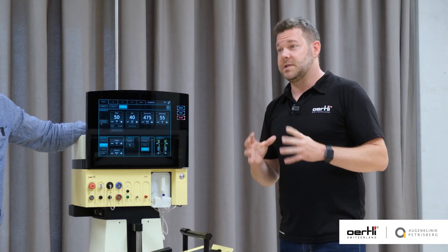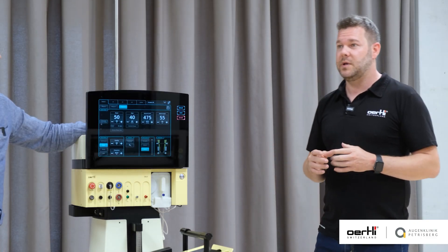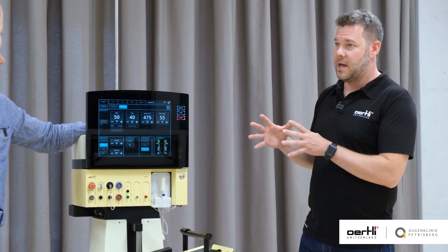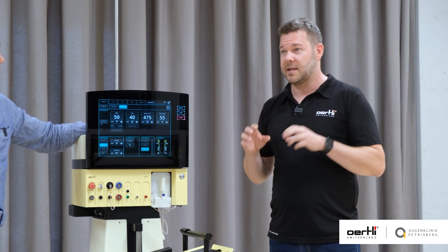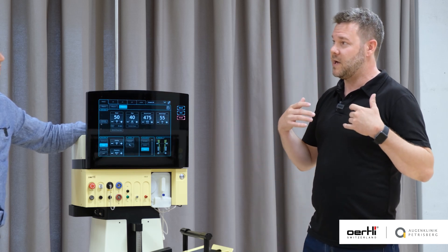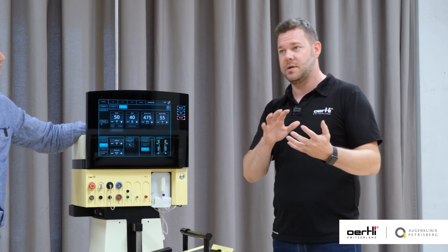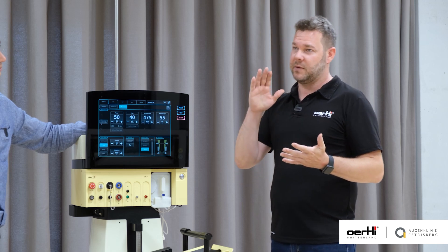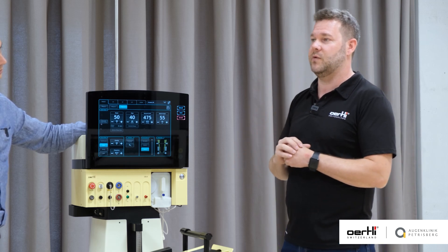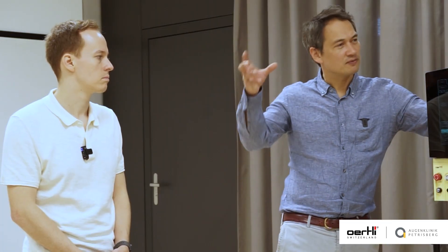What are the key features of the speed pump? With the speed pump you have the possibility to control the flow and the vacuum at the same time but independent from each other. As soon as you have occlusion on the speed pump, you can linearly control the vacuum with your foot pedal — so once you have occlusion, it works like a peristaltic pump.